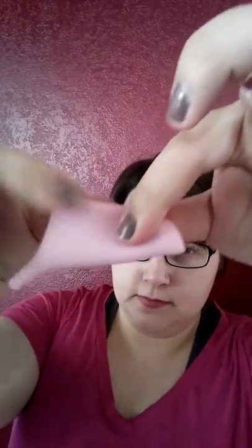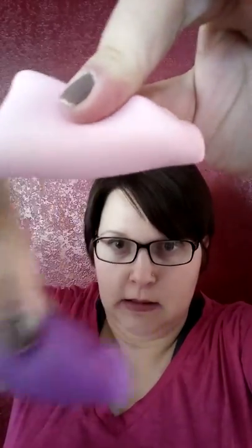There are no seams on it whatsoever — it's just one piece of really nice silicone. It's thin except for the spine areas. This is what the punch-down will look like — it's got a really small punch-down when you compare it to what my Lunette looks like punch-down. And look at how much smaller it is with my Lily.